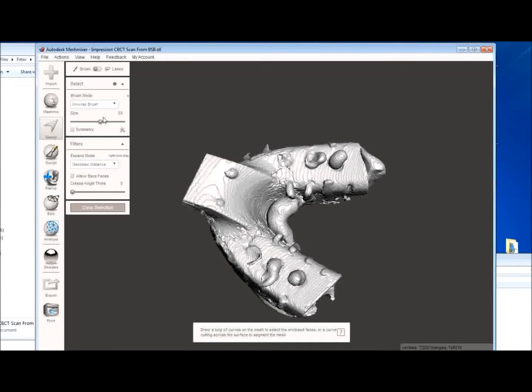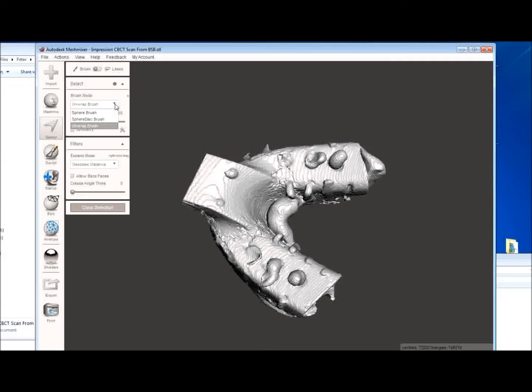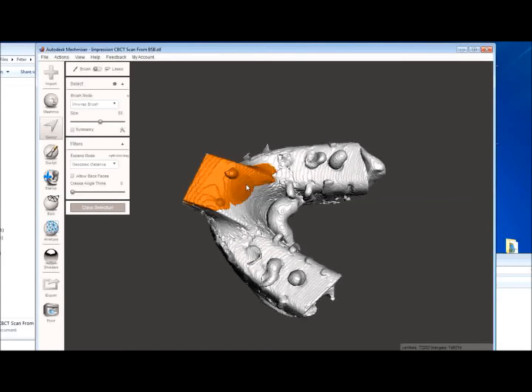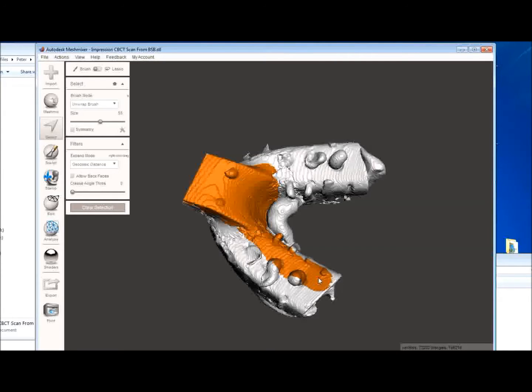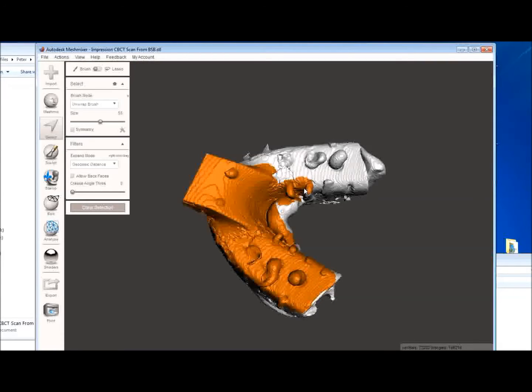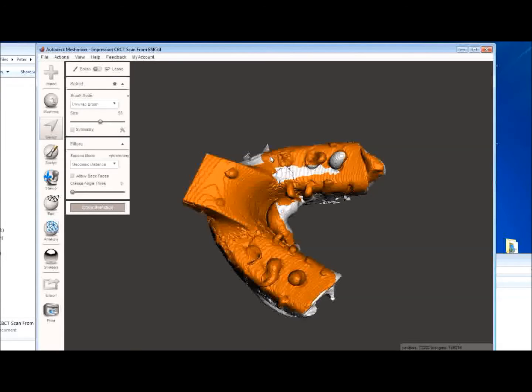And what we're going to do is go ahead and click the select button. Make sure that the unwrap brush is selected. Change the size of the brush to 55 and just sort of paint away the tray. So we're going to go ahead and select areas on the tray that we want to remove. And try not to leave any holes. Try to select the entire tray area. We don't want to go over into the vestibule of the actual impression. But we can take away areas of the impression also that we don't need. So we're going to just paint this away.